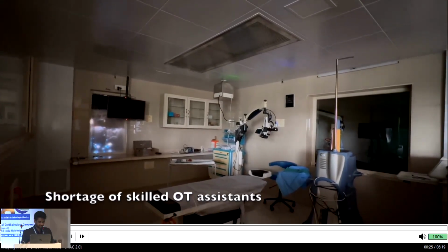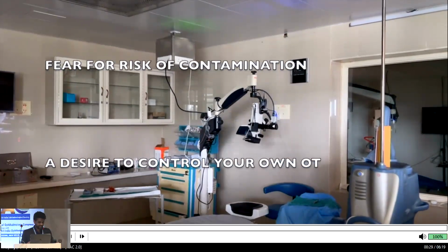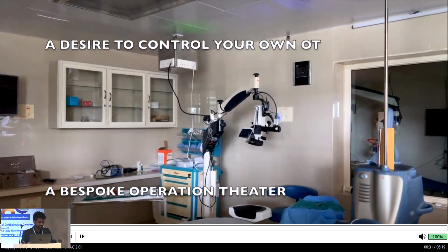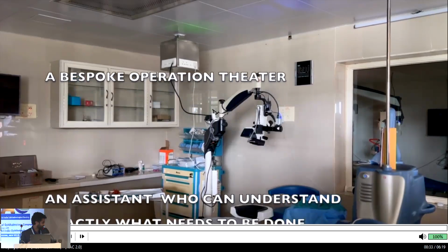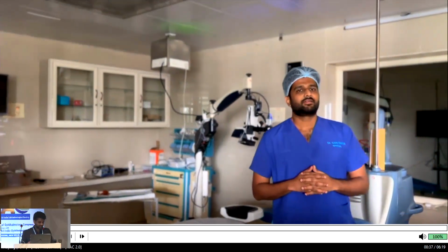So mainly I've designed this because there is a shortage of skilled OT assistants, and every time you need to train a new person to do what you wanted to do. And I, being a new surgeon, wouldn't have that much support.